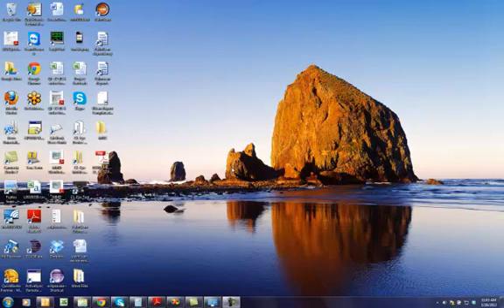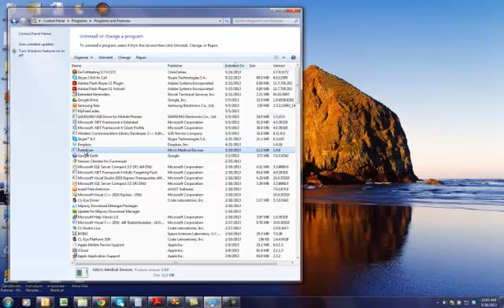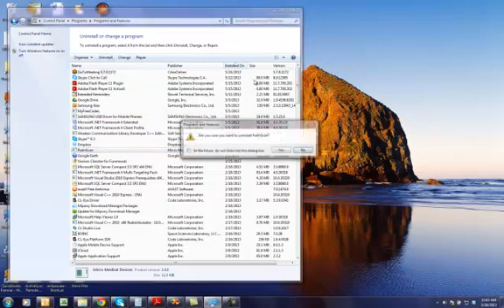In this video I will show you how to install the Mobile B-Scan and then how to use the new software. The first thing you want to do, if you have an older version of the PalmScan software on your system, is to uninstall the older version.